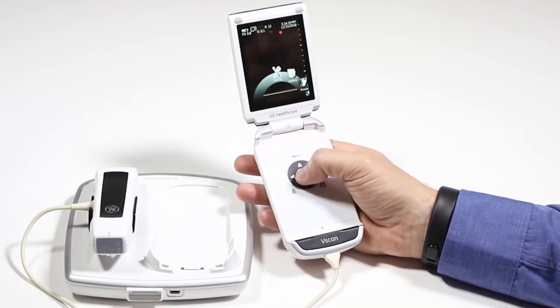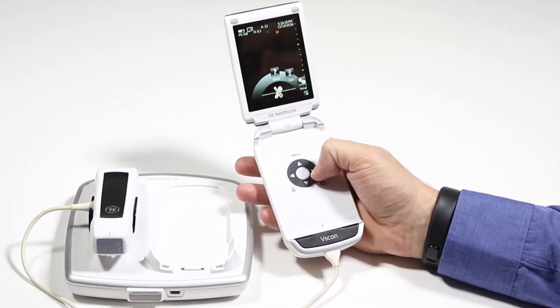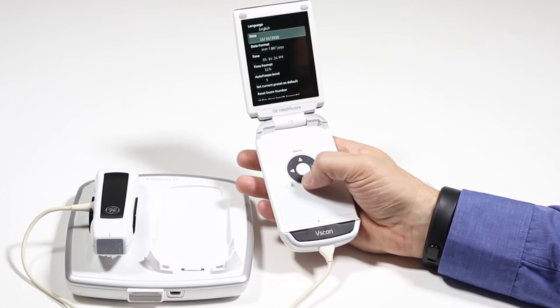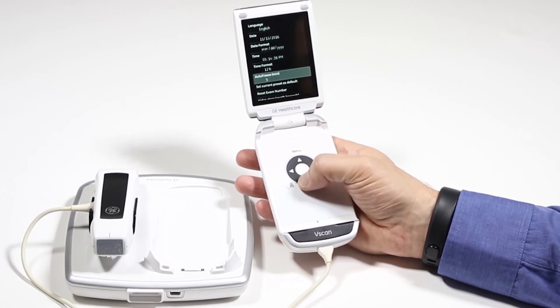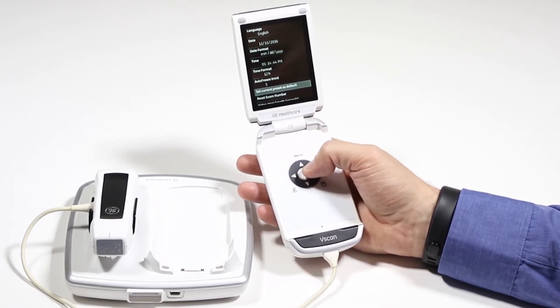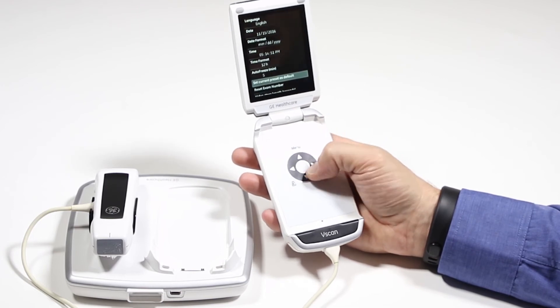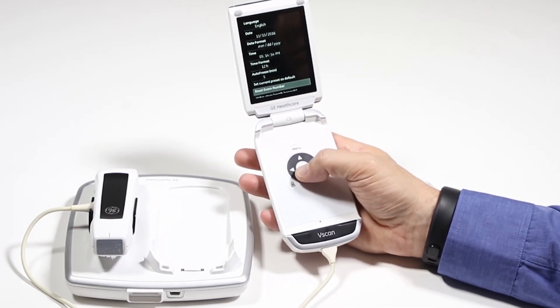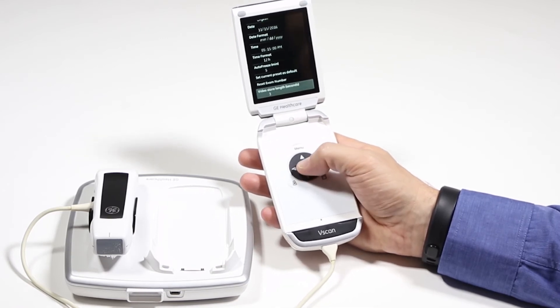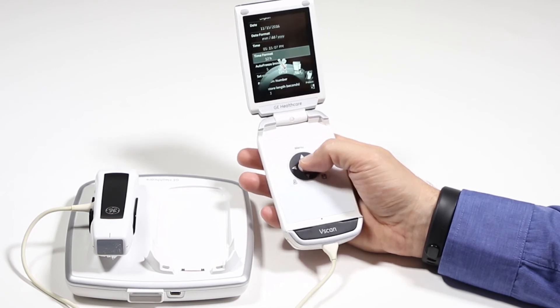Let's check out the configuration — click config, then setup. This is about system software and the current version. The test option runs a system diagnostic. In setup, it's very simple: you can set how long before auto-freeze — I'd keep it at the default five minutes. You can set the current preset as default, so if you always do cardiac, it'll open to that. You can also reset the exam number back to zero and set the video storage length in seconds.